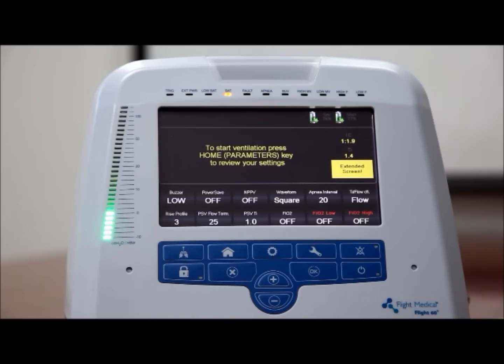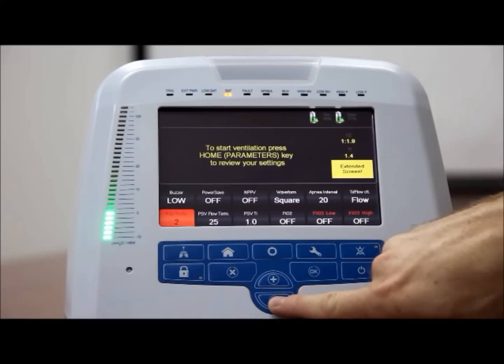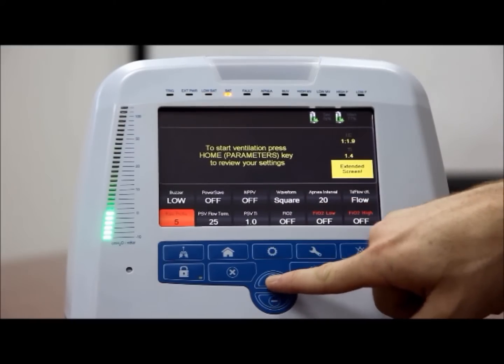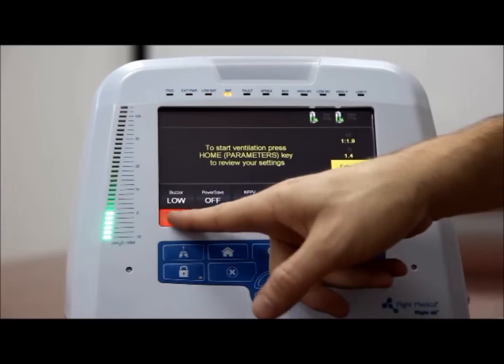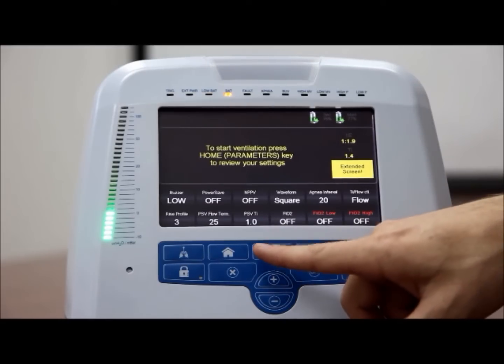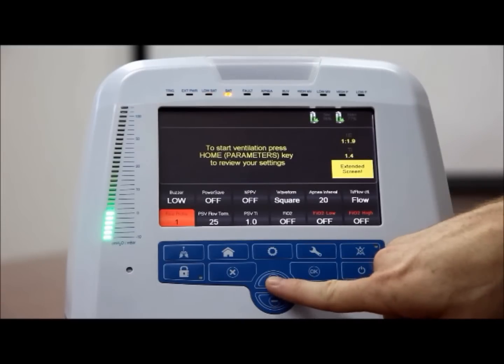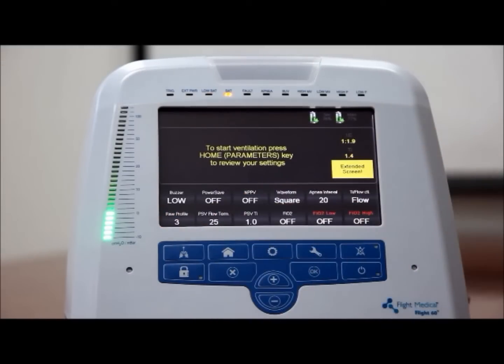Rise profile. The system can deliver 5 different levels of rise times, ranging from 1, the fastest, to 5, the slowest. To set the rise profile level, on the ventilator front panel, press the extended button. Tap the rise profile control button. Press the plus and minus soft keys to increase or decrease the level until you reach the desired rise profile level.